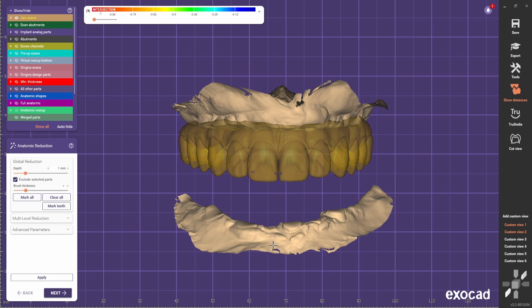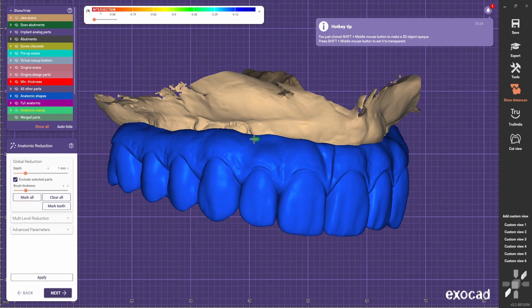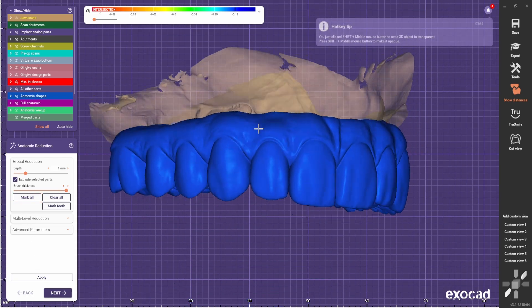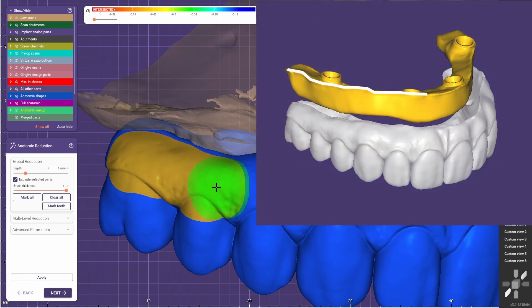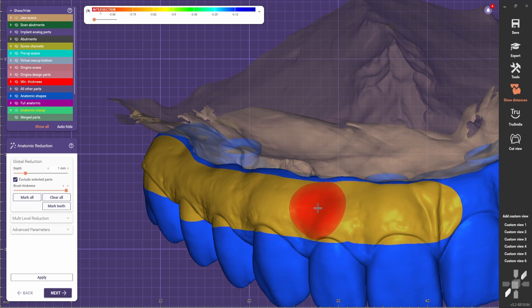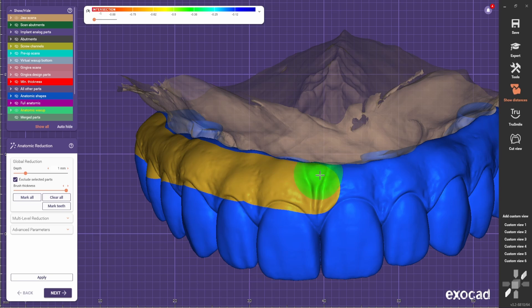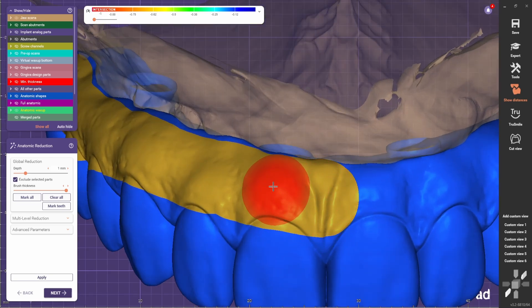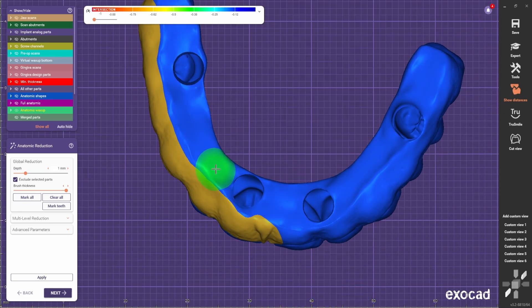The idea here is to first mark all and define the base of the bar — basically select the margin of the bar. You see this blue line here; it's going to be the base of the bar. When selecting the margin on the buccal side, be sure where the margin needs to be. If the patient smiles and you can see this transition, you should try to hide the bar as much as you can inside, otherwise the transition is going to be visible. So you need to be careful with that.